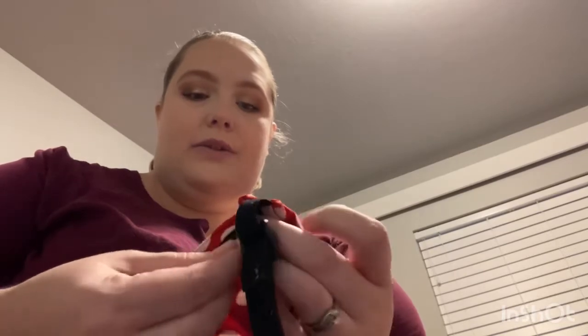These are a lot more expensive than a regular fanny pack — they're really small and I have to hand-wash them. I've had it since she was diagnosed. It has a little opening made just for the pump tubing, so you take the end of the tubing and put it into this little hole. Then you can store the pump and a lot of the excess tubing inside, zip it up, and it clips around her waist to contain and hold everything.